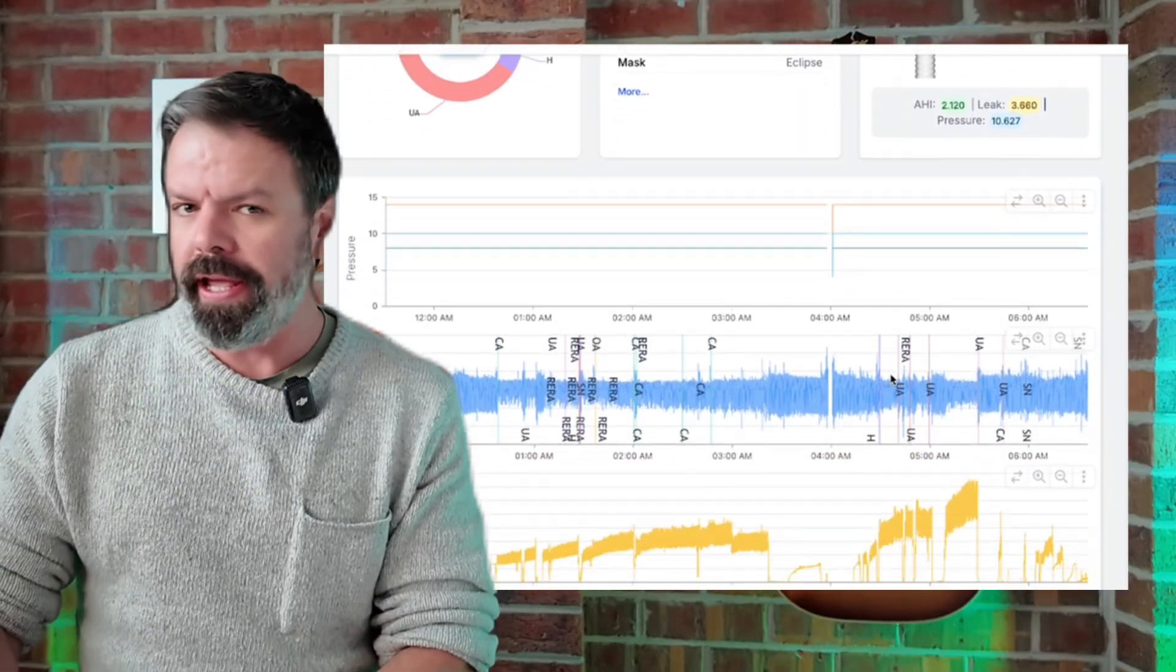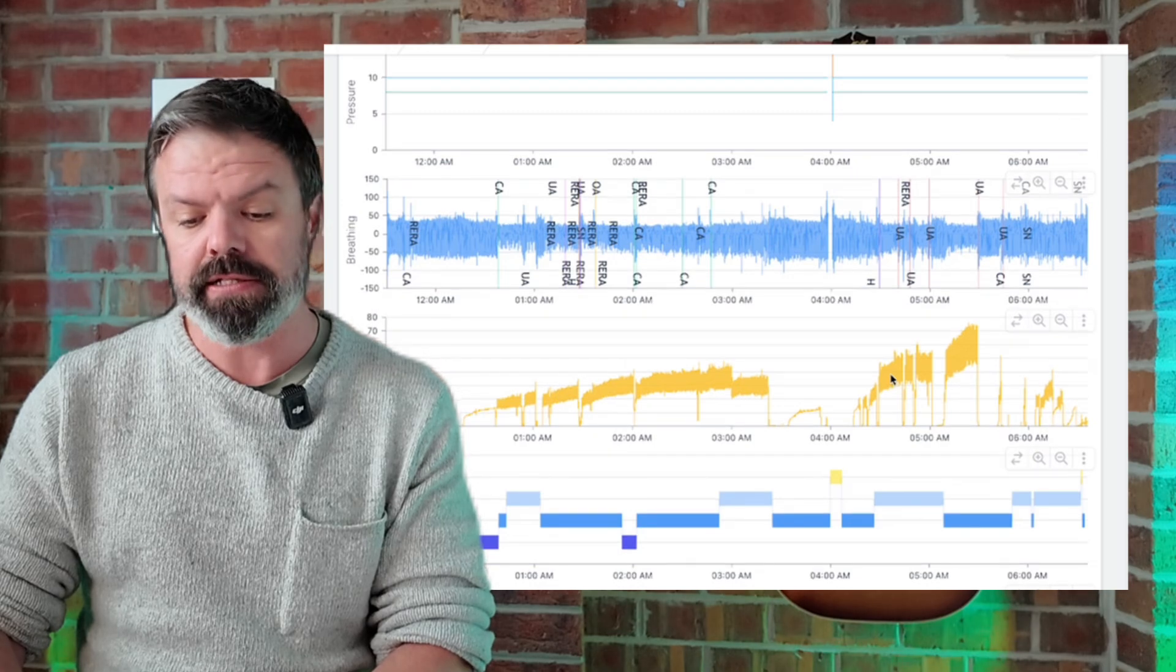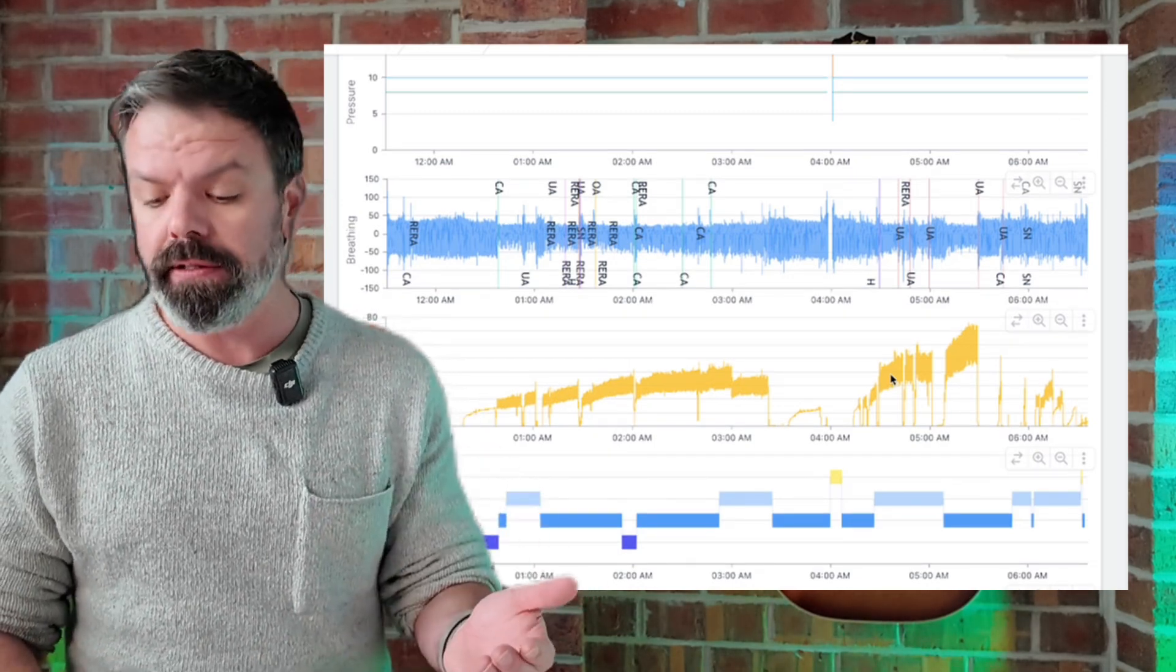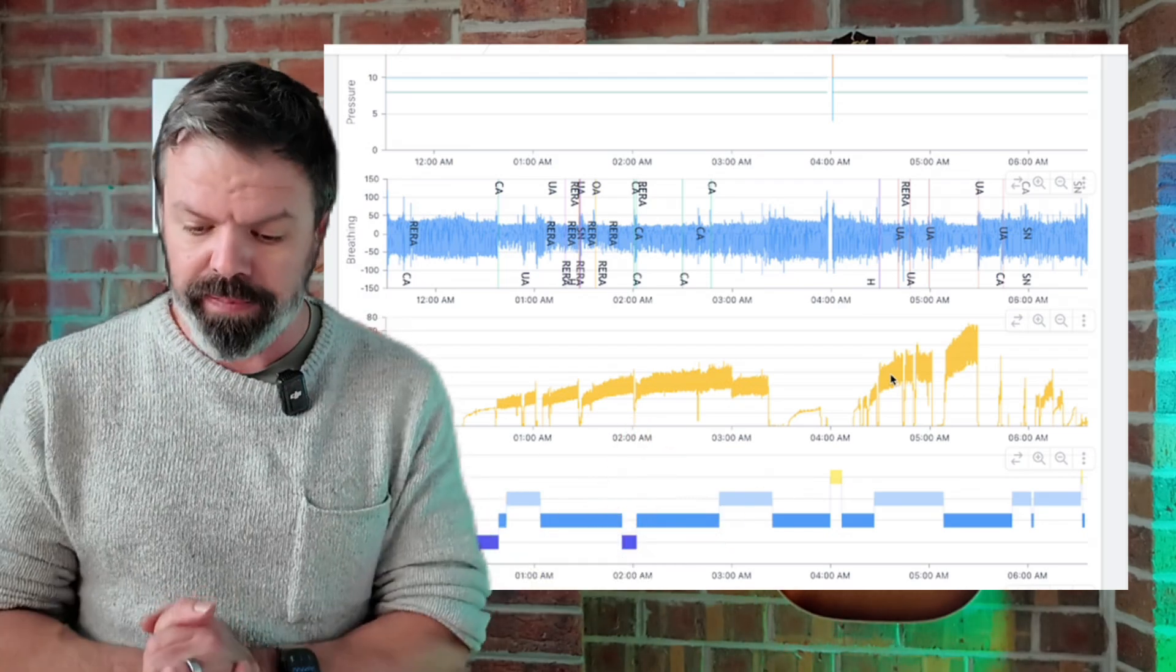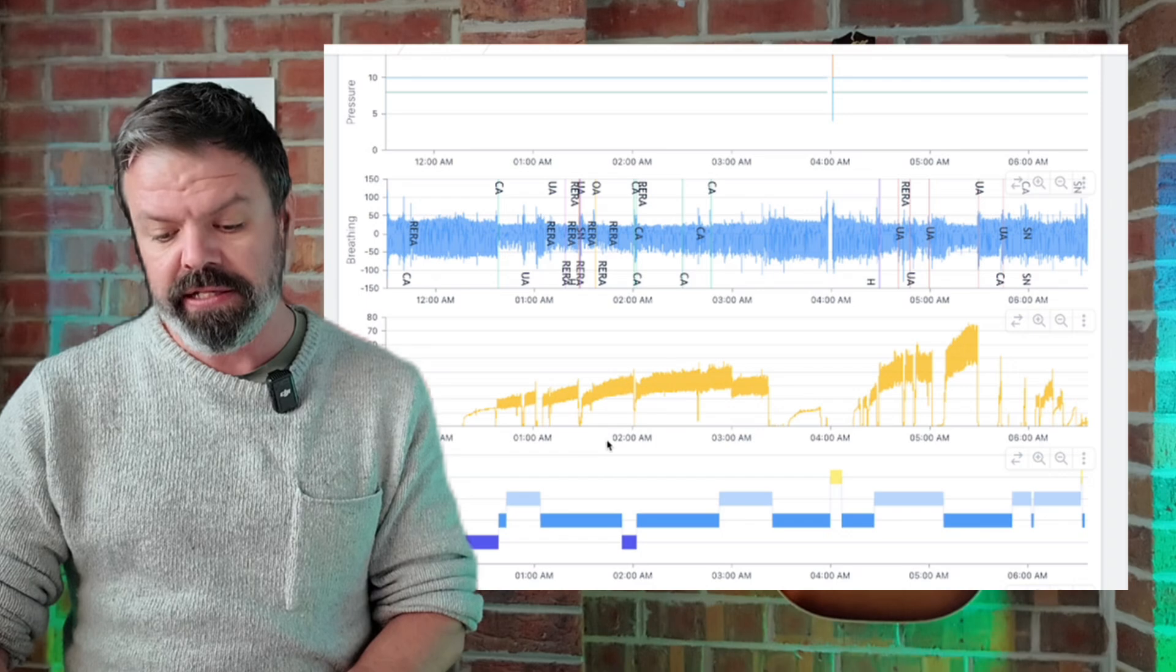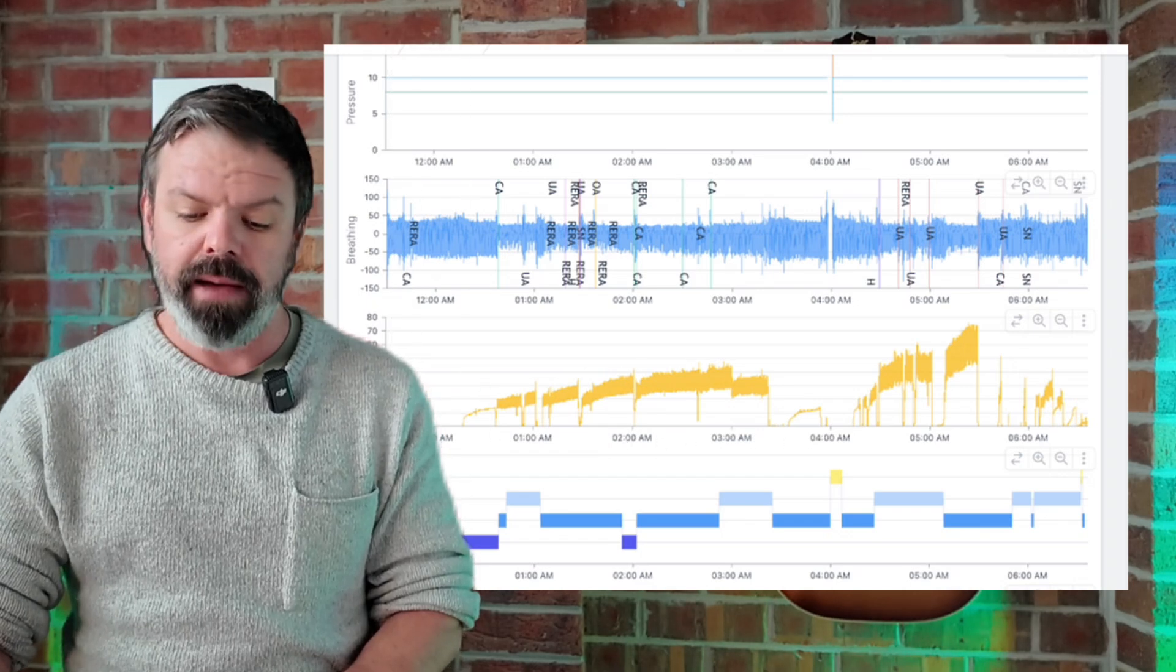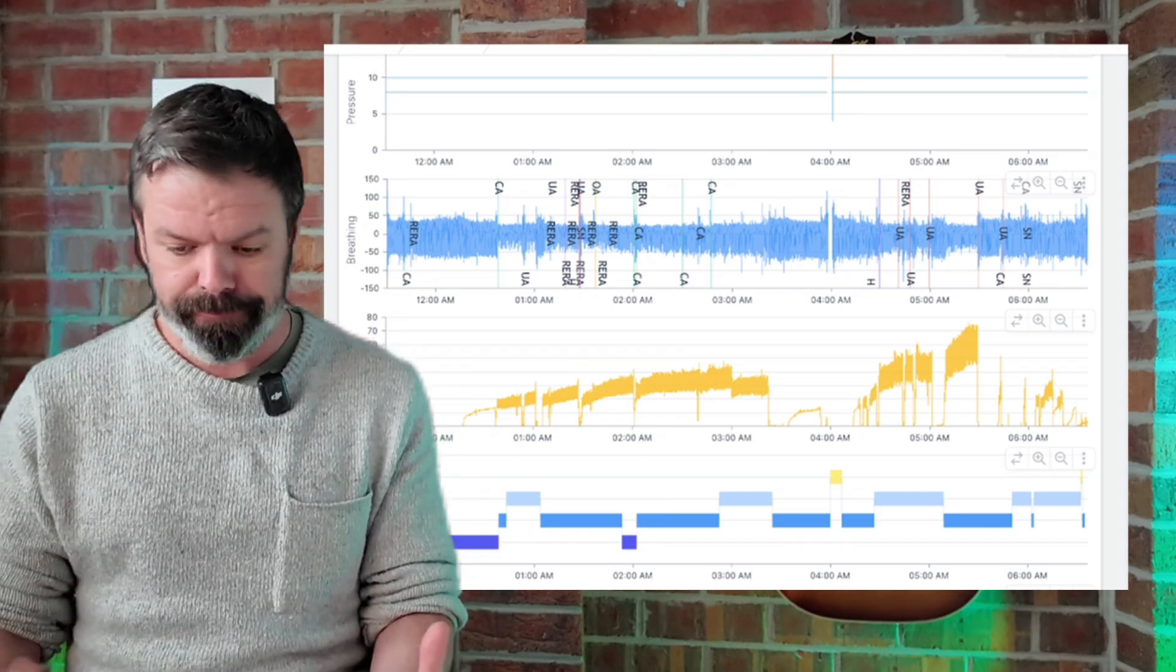The lower your leak, the better your results, especially if you're using an automatic CPAP machine. As soon as that leak starts to increase, it causes all sorts of problems. It's also going to cause sleep disturbance, dry mouth, and so on. So let's scroll down to the high-resolution leak rate trace. This is information that you just don't have access to on the MyAir app or the DreamMapper app. Here it is. Along the x-axis you can see we have the timestamps 3 a.m., 4 a.m., and up the y-axis we have the volume of leak measured in liters per minute.